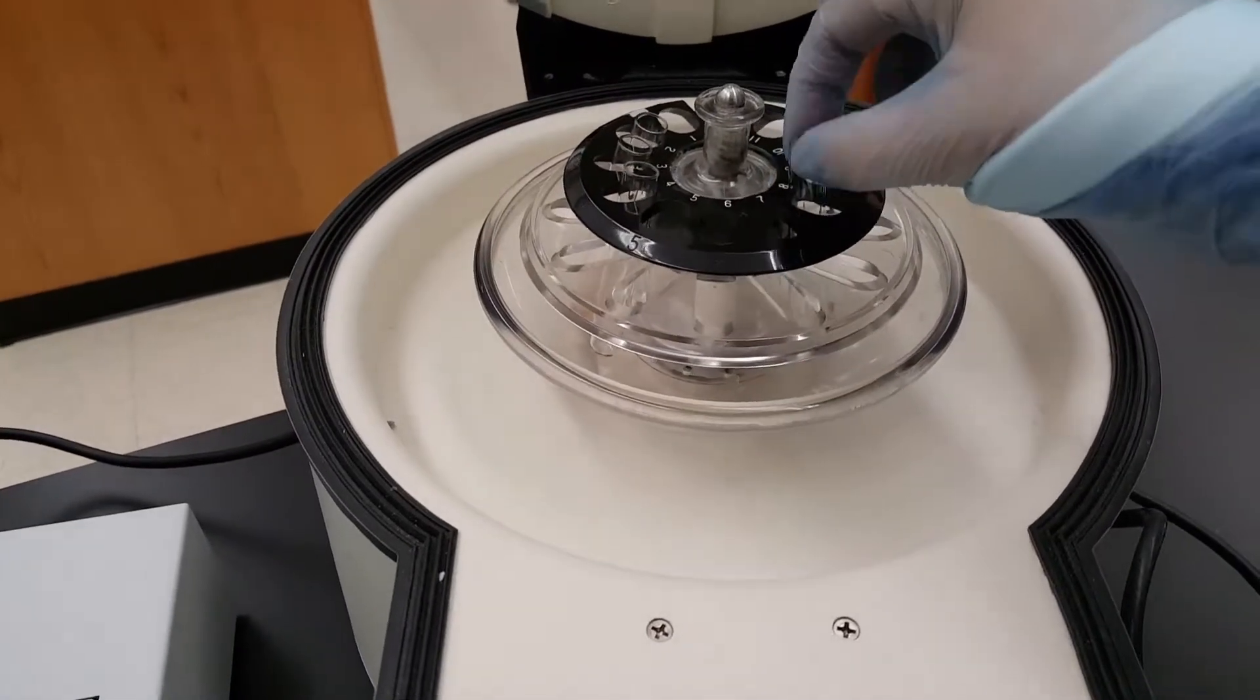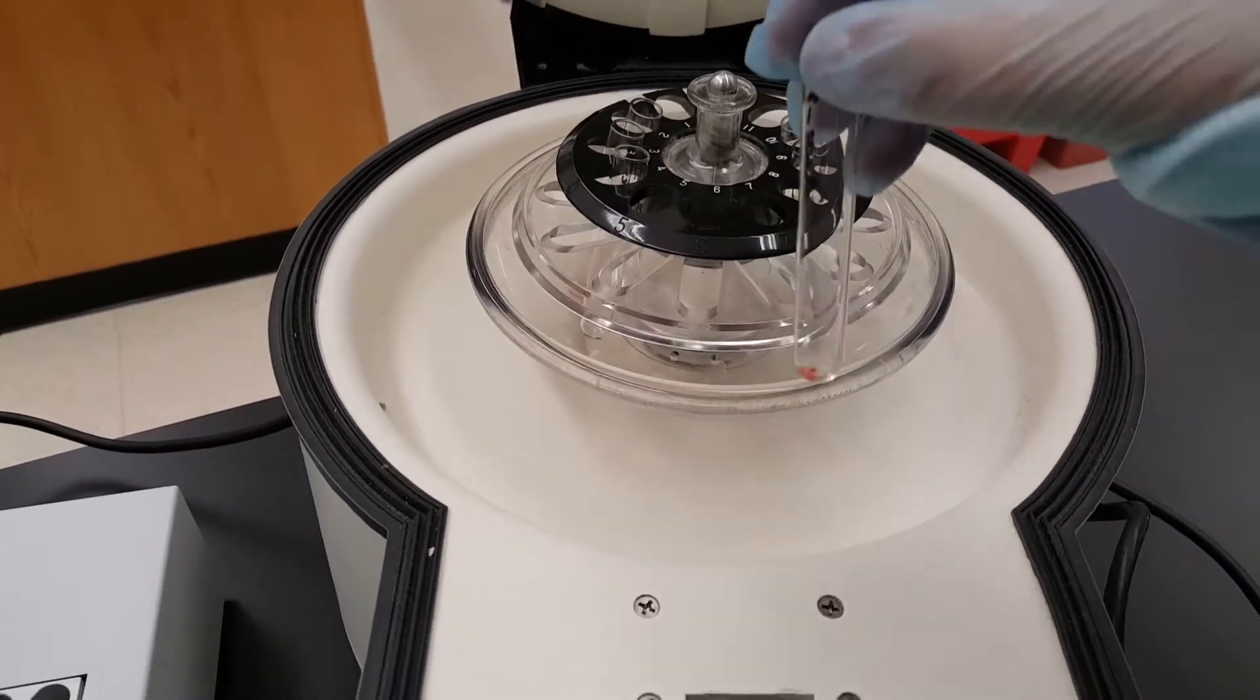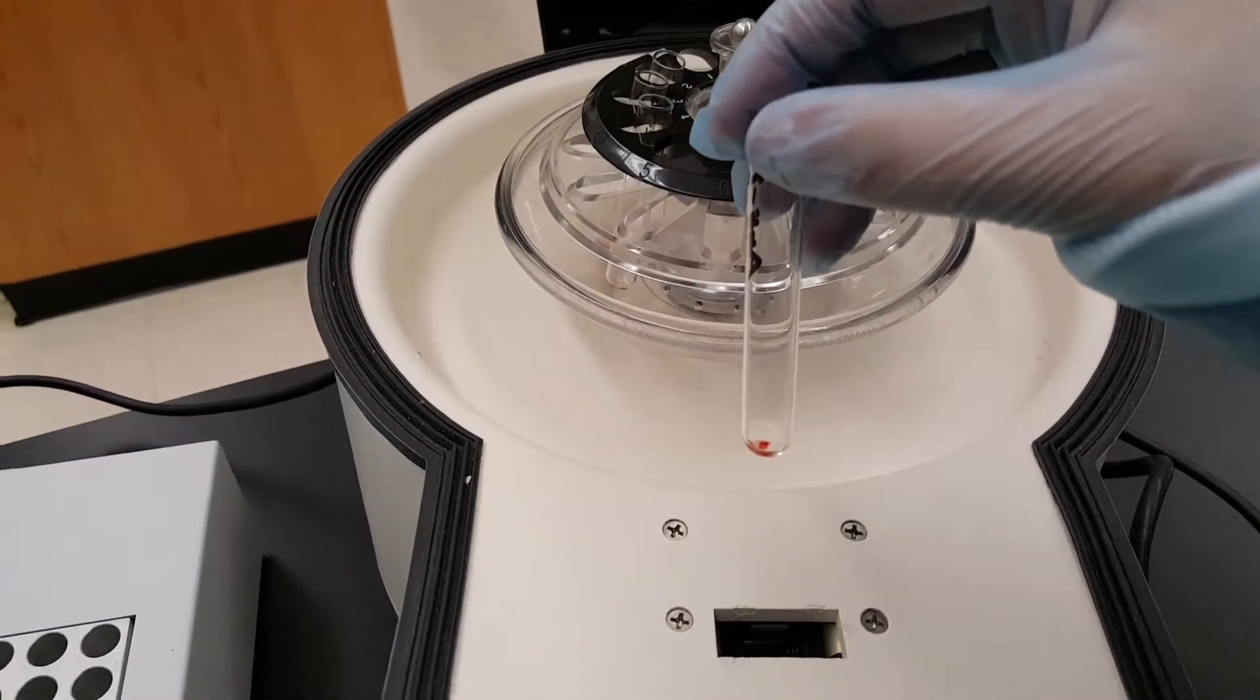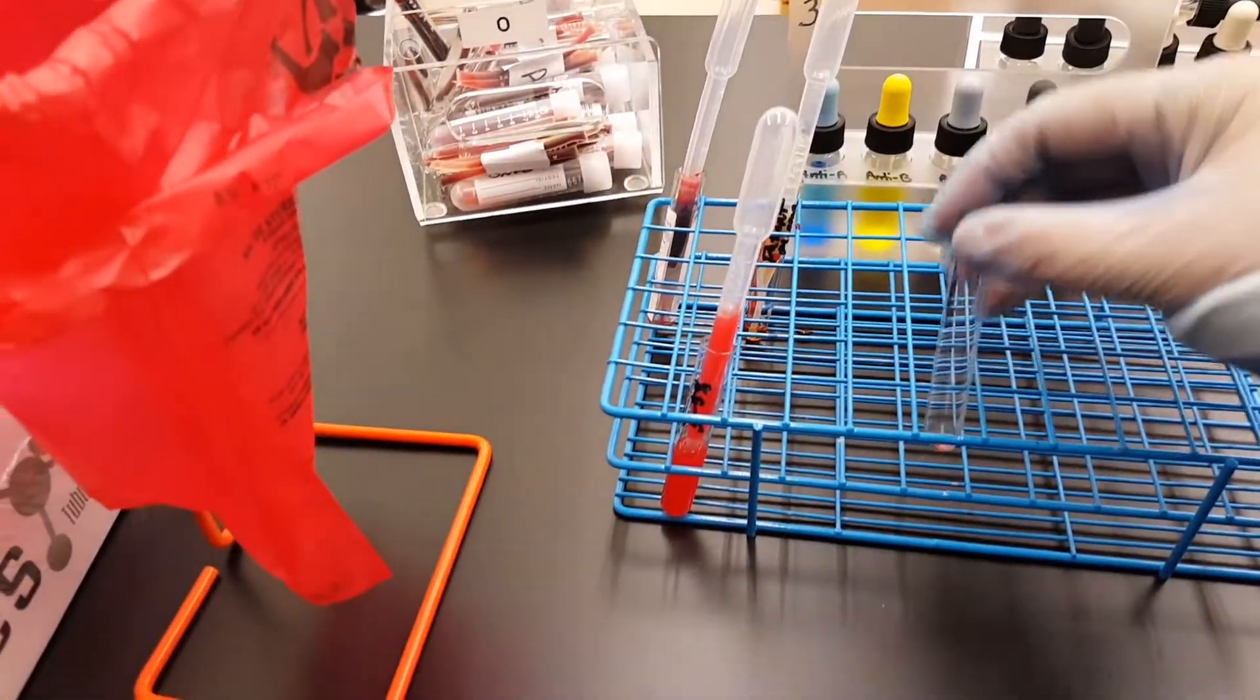Okay, so we just finished spinning these down and you can see a button on the bottom. When you pull these out, you want to be very, very gentle when you take them out so that you're not breaking the buttons apart until you're ready to look at the reactions.